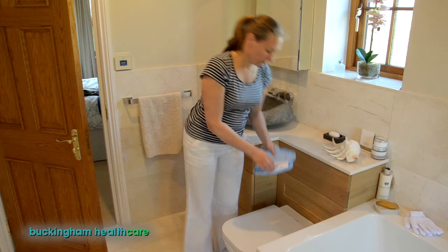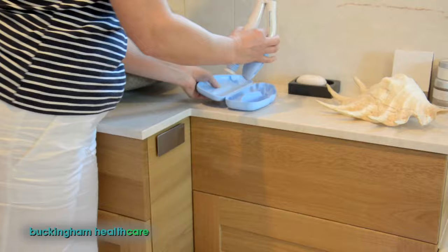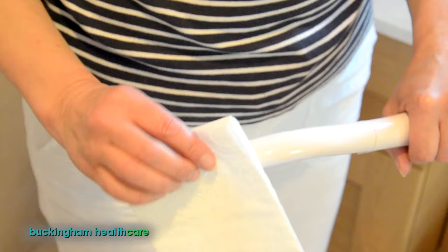Take your Compact Easy Wipe from its carry case and snap it out to full size. Take hold of your toilet tissue — four sheets should be enough — and wrap the tissue around the Easy Wipe, tucking both ends into the unique gripping slot.